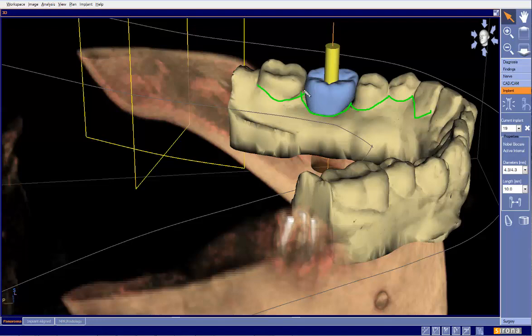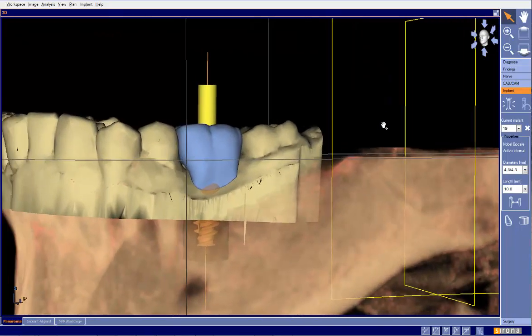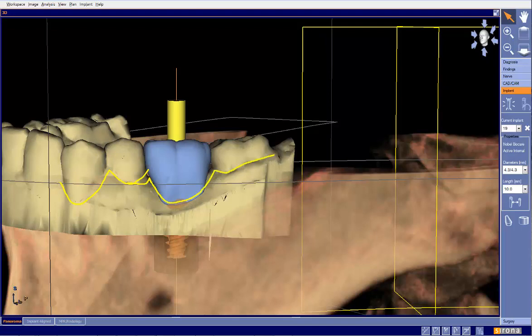I don't think our tooth margin would go down like that. Instead, I think our tooth margin — and I'll draw that in yellow — should probably be more right there. When I draw these margins in the CEREC software, I want them to be accurate with what we expect, because it can kind of trick or fool us. The lingual wasn't too bad; however, on the buccal — I'll do this in yellow — we can see the tissue margin is probably like that, and then it drops way down. So our buccal margin should probably be more like that.